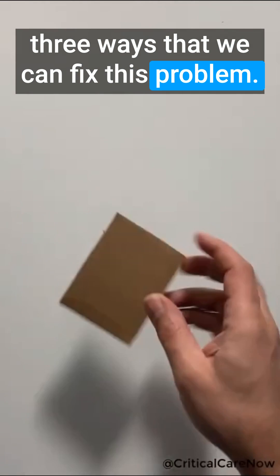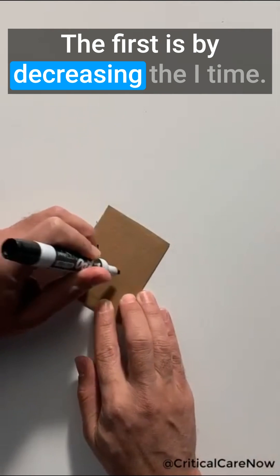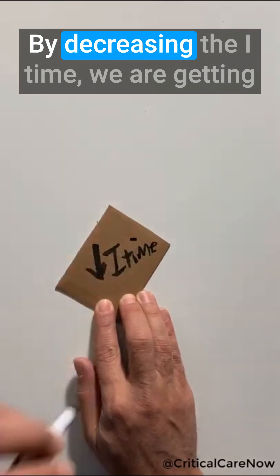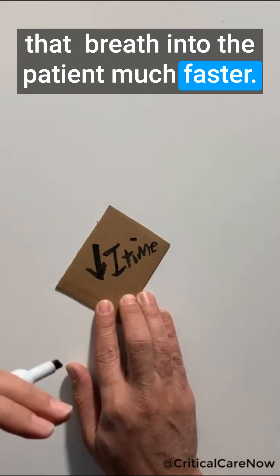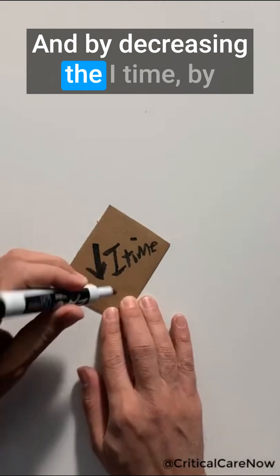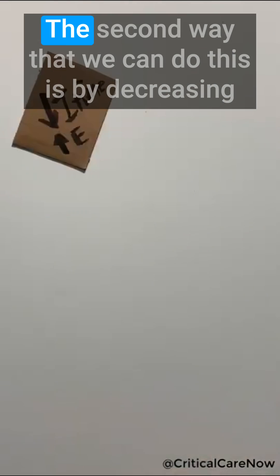There are three ways that we can fix this problem. The first is by decreasing the I time. By decreasing the I time we are getting that breath into the patient much faster, and by decreasing the I time, by default we're increasing the E time.